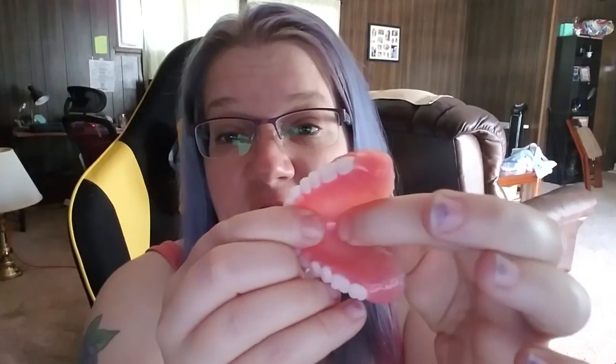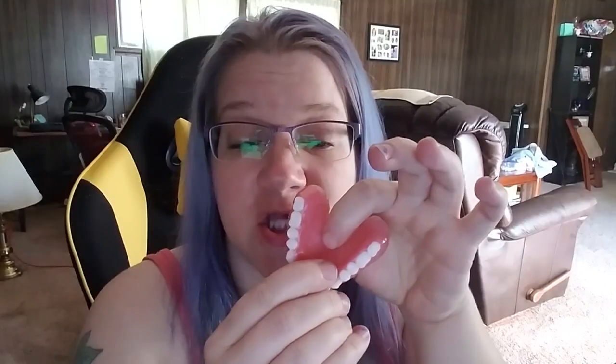So I cut it out. If you look, you can see I've got some denture fit here just to ensure that I don't lose any suction. It's very thin at the end and gets thicker as it goes up, because I wasn't able to slope this gradually enough with my Dremel tool to make it comfortable. The denture fit is hiding this edge that my tongue would otherwise seek out and play with.